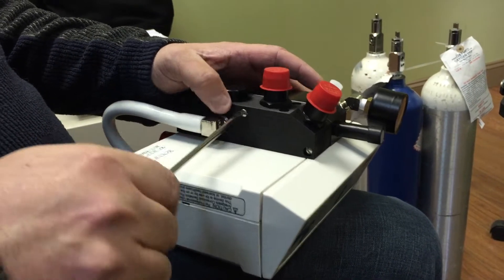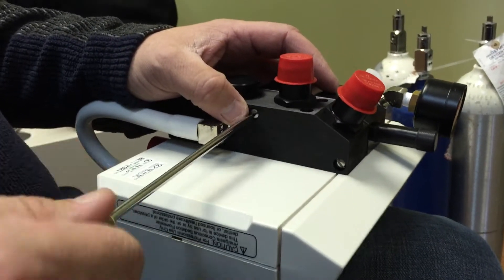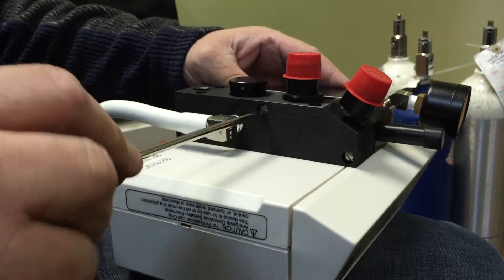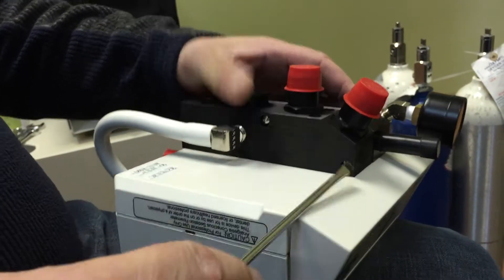Now if you could see that this is just a different part of the machine, but it has nothing to do with the actual machine. It's all independent of itself. And just snug those puppies up there like that.